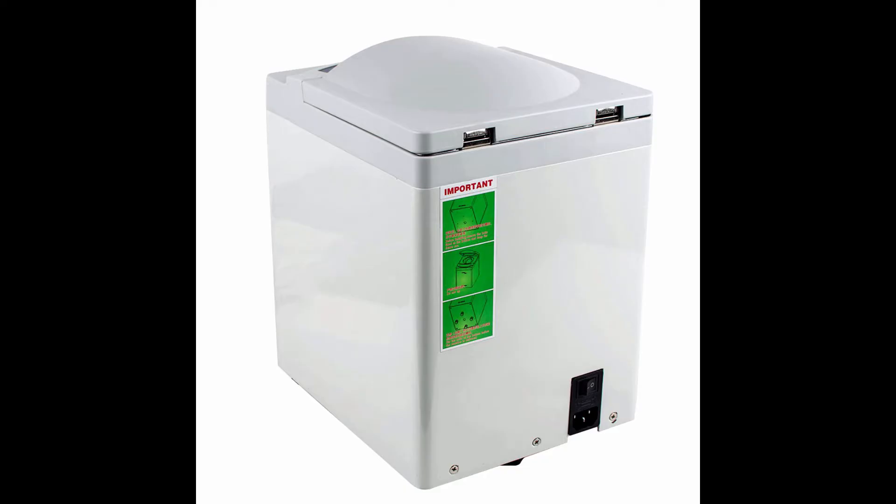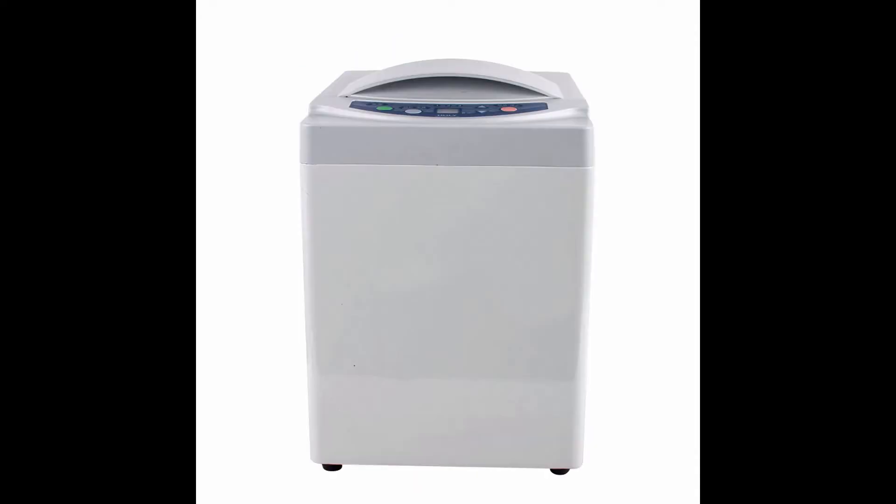Dental Original Automatic AlgeMax Alginate Mixer for Dental Lab — 3400 RPM, 110V, 3 Adjustable Modes. The mixer is easy to use and there are 3 mixing modes you can adjust according to your needs. Note: don't accept expedited orders — please understand we need 2 weeks to prepare.